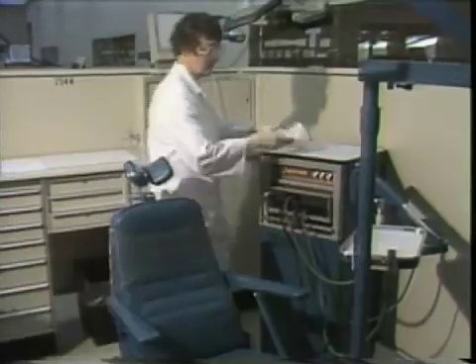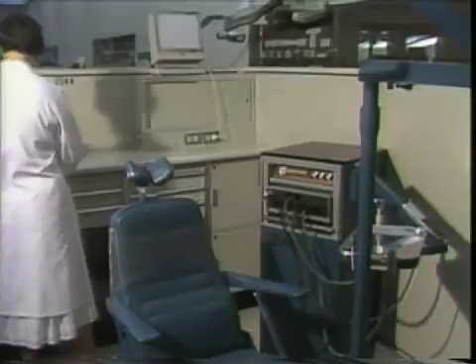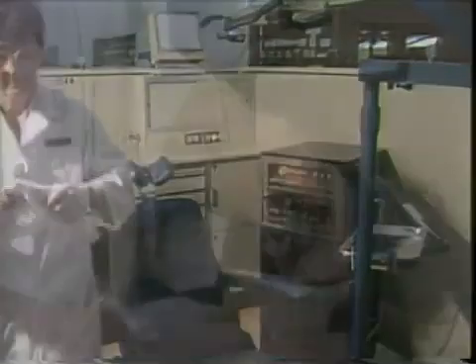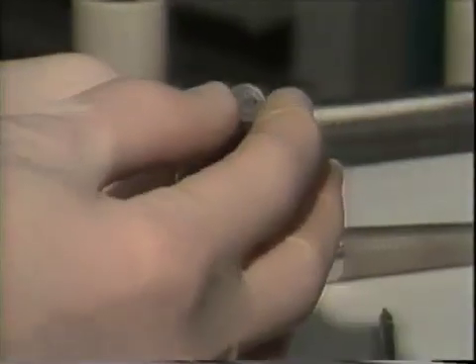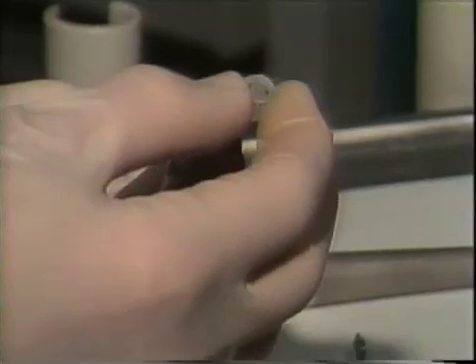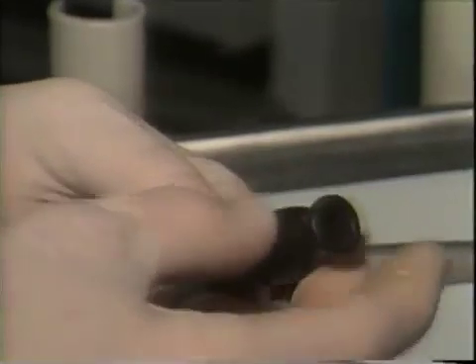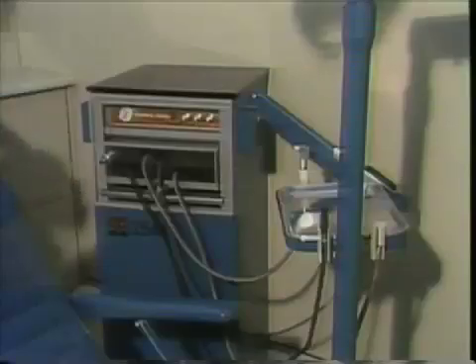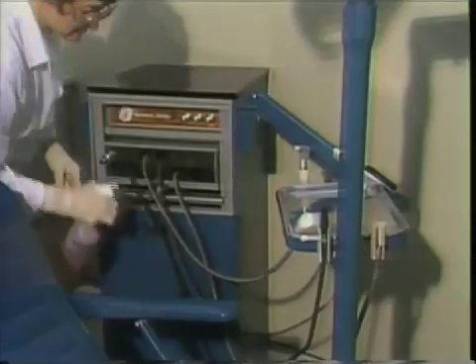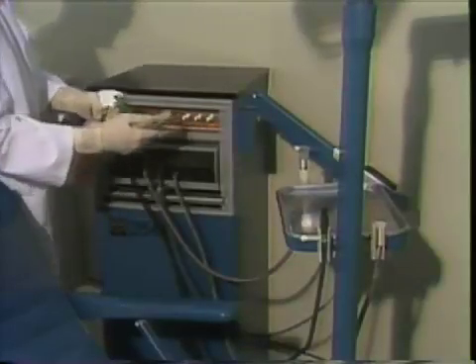Remove all paper and disposable items from the cubicle and place in the receptacle beneath the sink. Purge the air-water line one minute after removing the tip. Check the basket in the saliva ejector; if full, discard it and replace it with a new one, which may be obtained at the central sterilization. Feed a sink full of hot water through the high-volume evacuation system and the saliva ejector suction system. Spray the hoses, unit arm, and tray with biocide and wipe the hoses with a saturated paper towel before placing back into the unit.